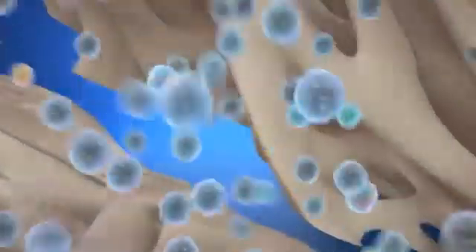After the graft material is placed into the defect, it reacts with local host tissue, and body fluids begin to hydrate the surface of the bioactive glass.